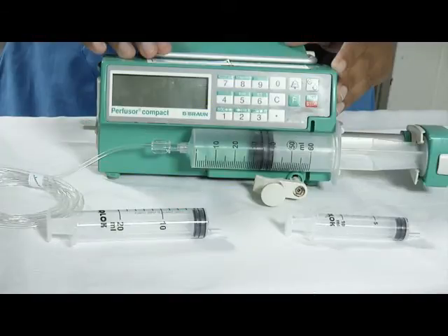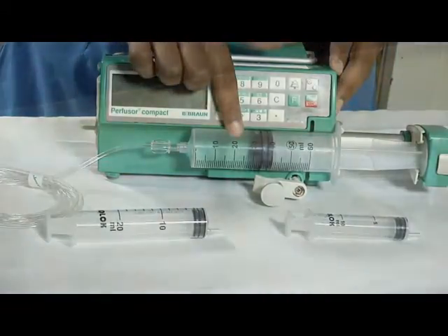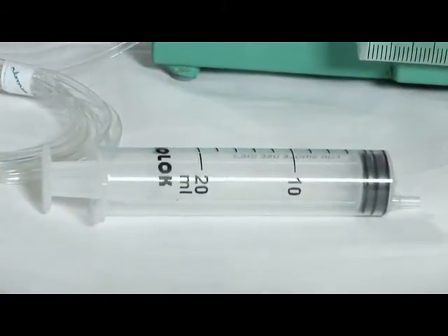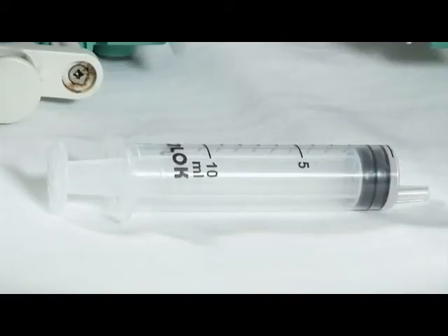Different kinds of syringes can be used by the same pump. This is a 50ml syringe, 20ml syringe, 10ml syringe.